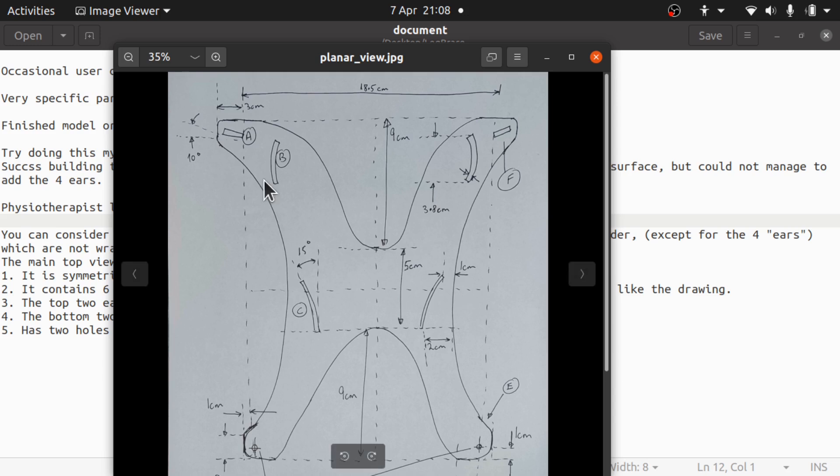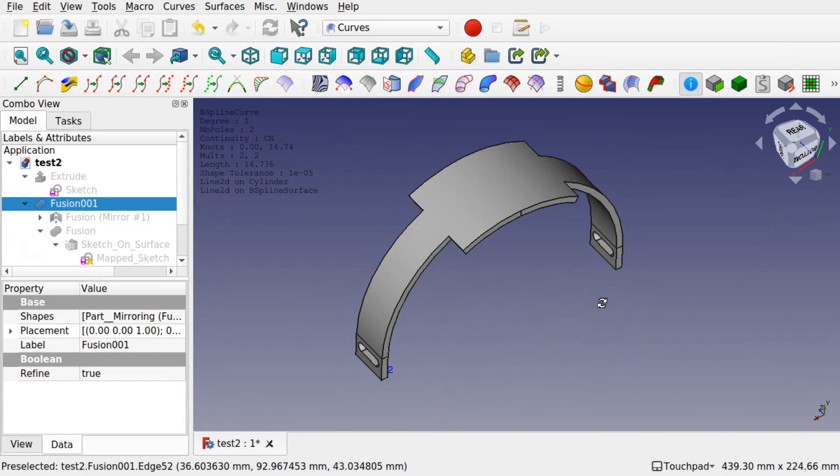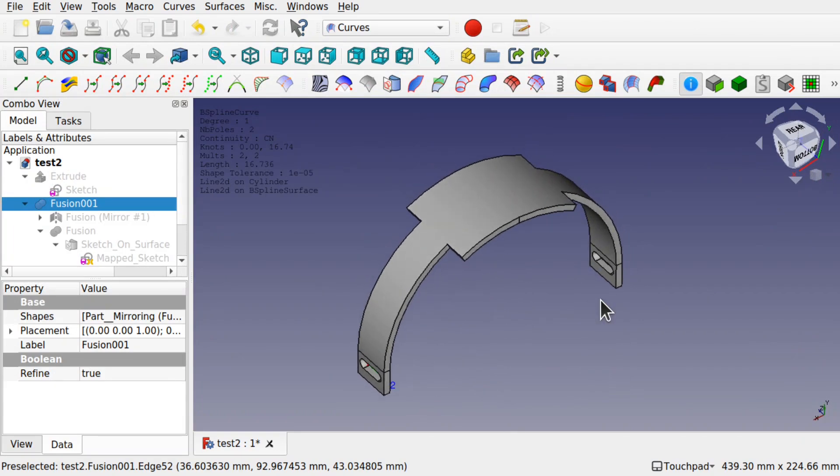The first steps in this build, we're going to go through a few techniques in the curves workbench, not just teach the techniques but also to understand if the technique is going to work. We're going to be using a simple body that has some similarities to the object. It's just to test down the workflow. This means if we progress down the workflow and decide that it's not the right workflow to take, then we haven't spent considerable time going down that flow with a more complex object.